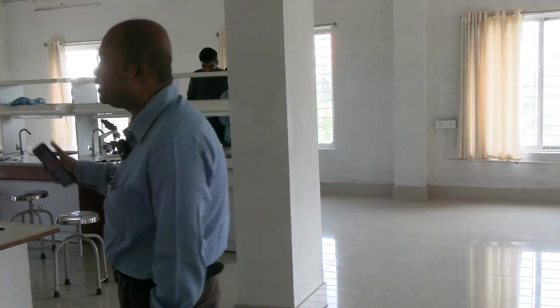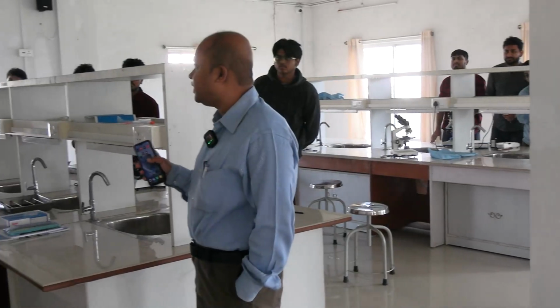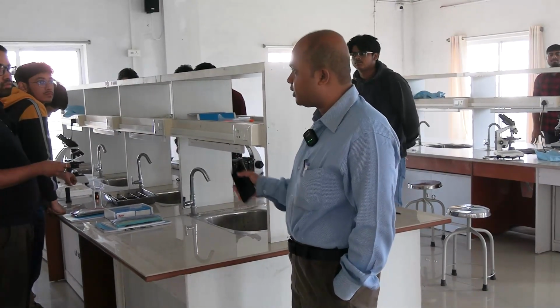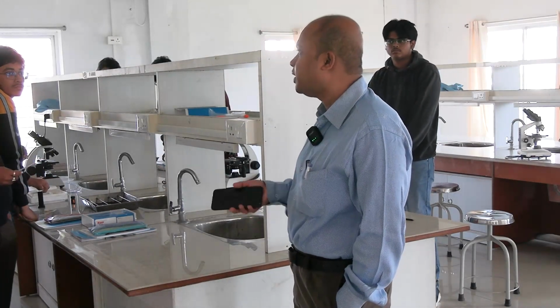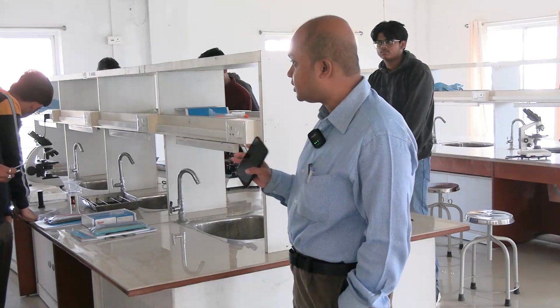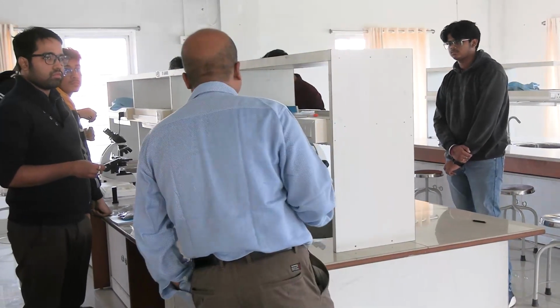What I forgot to tell, those who have already done know, the strength of the acid taken is N/10. That is the standard. So questions may be asked, what happens if a more concentrated acid, say N/5 or N/2, is taken, will the experiment be possible? The answer is no. So this is standardized with N/10 HCl, the acid hematin reaction.